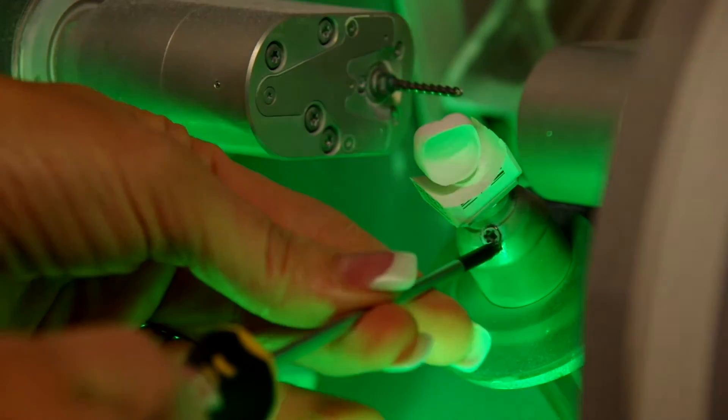When that comes out of there, even before it sinters, you can just see how refined those fissures are. It just looks awesome.